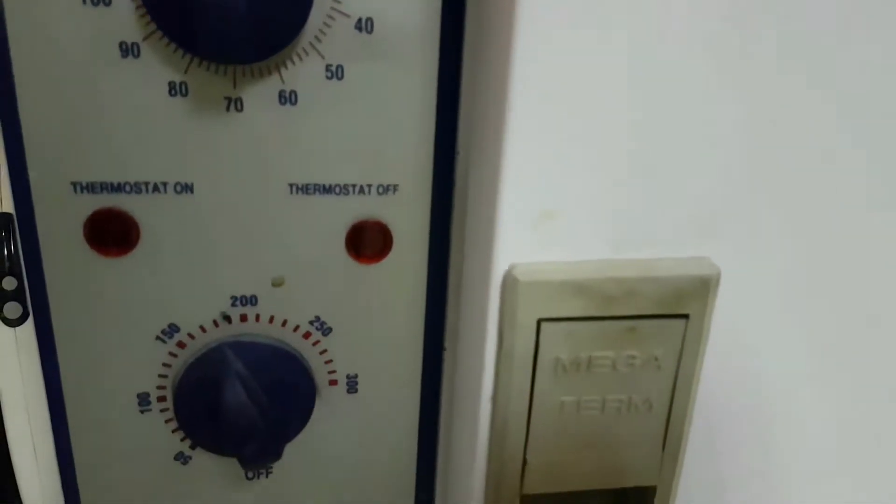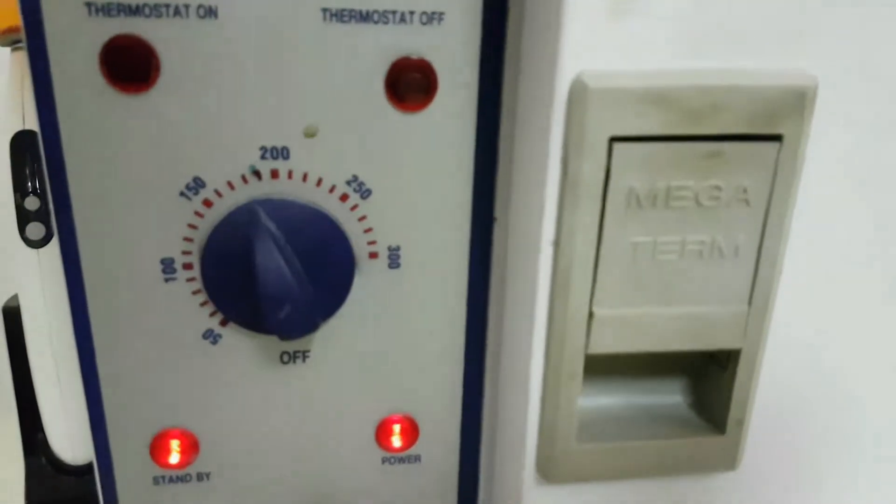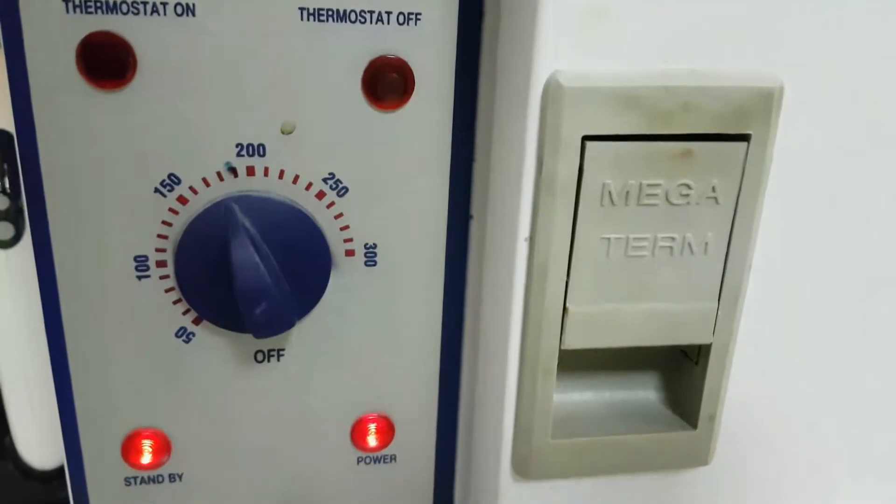So we have a timer, and we can choose the temperature we want.